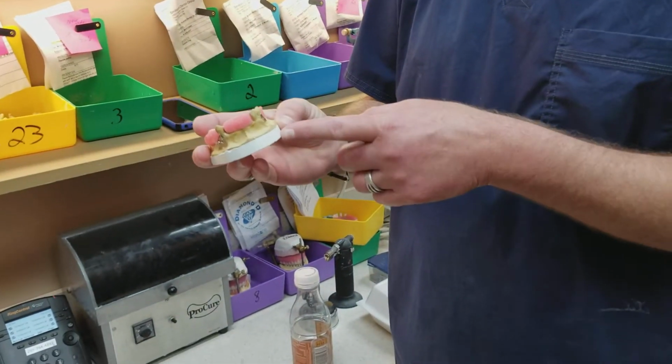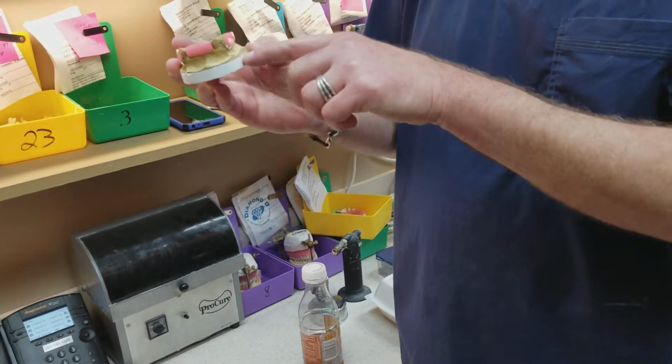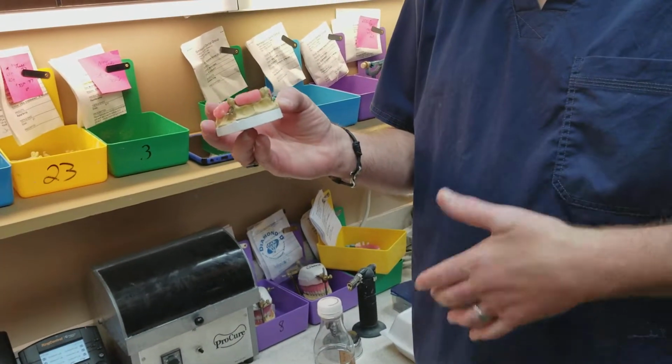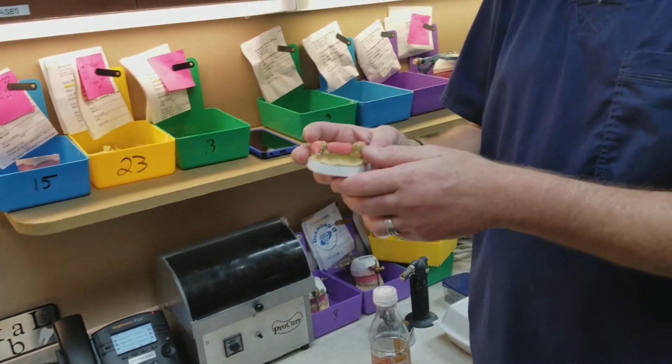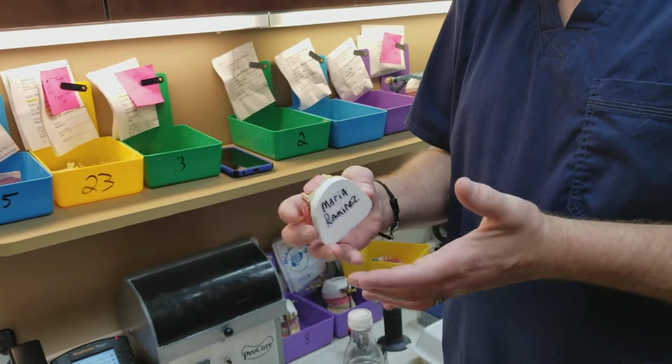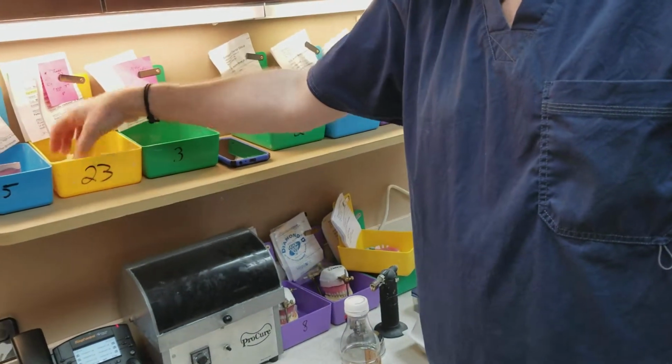I had to put a base on that, so that's how thin it was where the yellow is, and that's not really good because then you have to base it, and it just takes more time, and all the stuff I have in here. So try to eliminate that. If it's done right at the very start, then you have a good product at the very end.